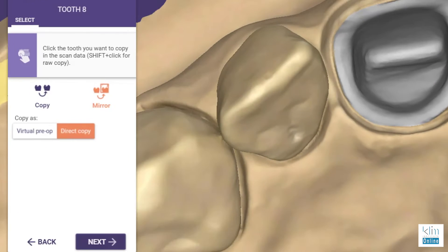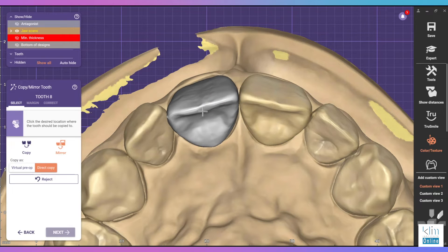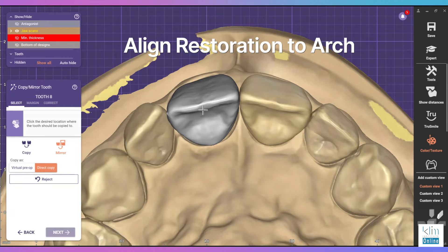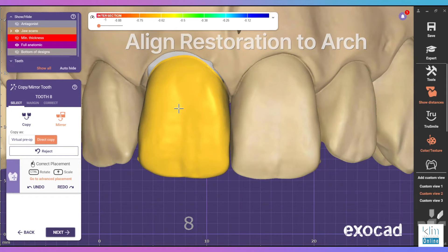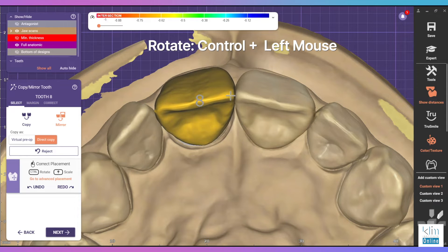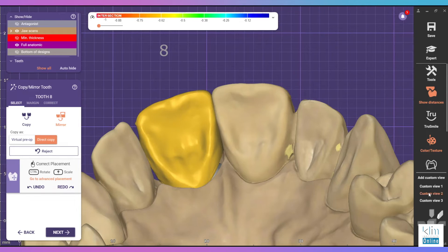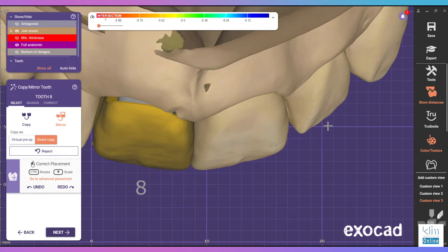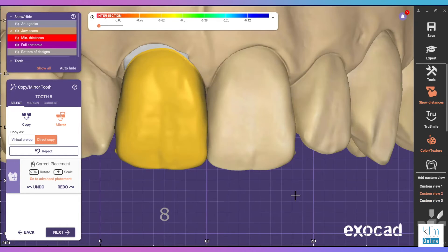To copy the tooth next door, click on your desired tooth to copy and the software will invert that for tooth placement. This is what you want to do at this stage. You want to get that tooth placed as close as you can in all the different angles — the mesial embrasures, the tipping, the torquing, the emergence. That's the beauty of this software. Before we attach this tooth to the model we want that tooth to be perfectly placed. When you're in ExoCAD, by having this placement really well defined there's minimal detailing needed in this workflow for the next step.